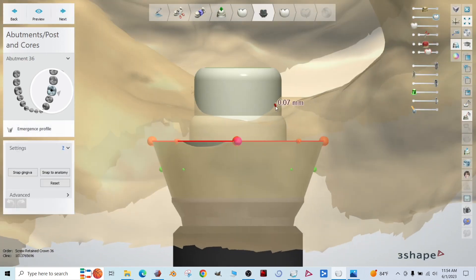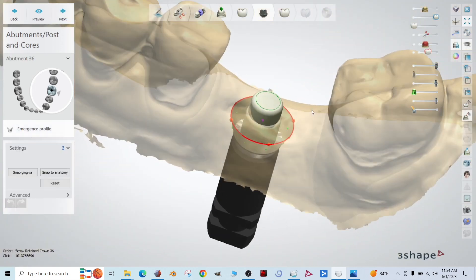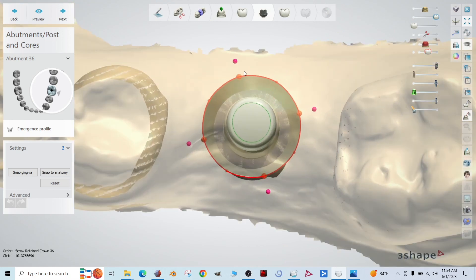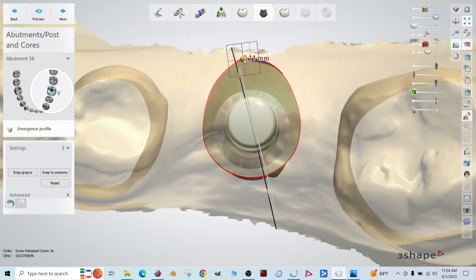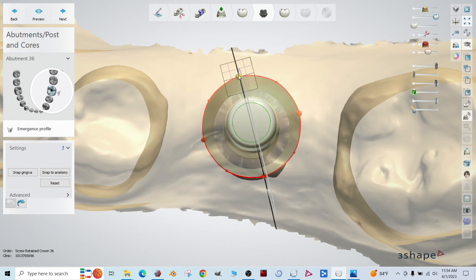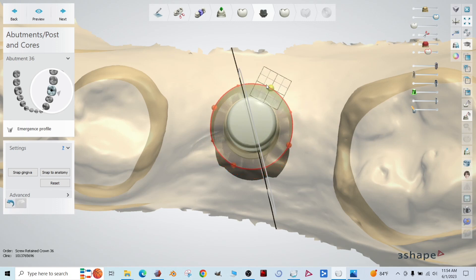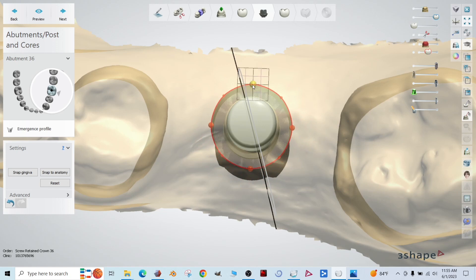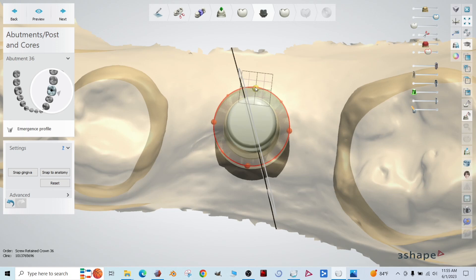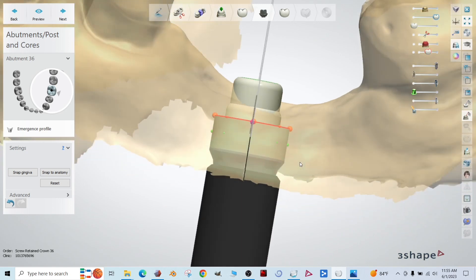This is the emergence profile step. One thing I found helpful in this step is see these big orange dots here. If you take one and move it around, it's going to really deform it. So undo that. If you click the dot and then hold control, you can actually spin all of them around. So go ahead and bring them in all the way towards the tie base and then position them buccal, lingual, mesial, distal as best you can. Nice.